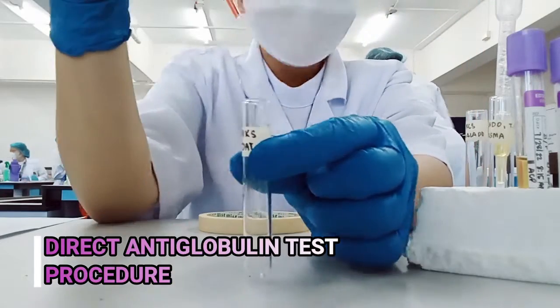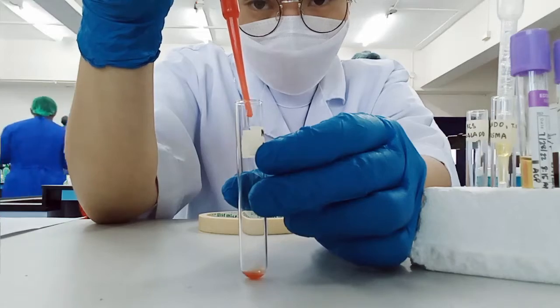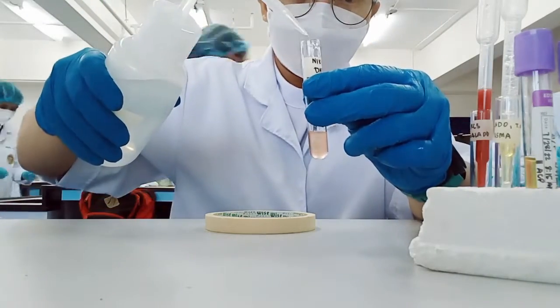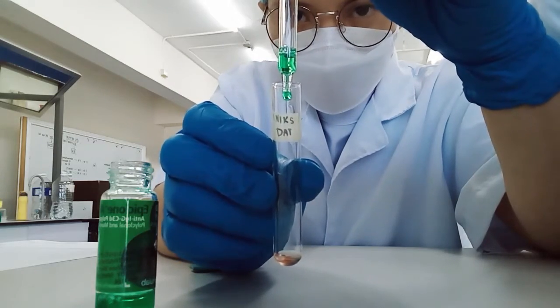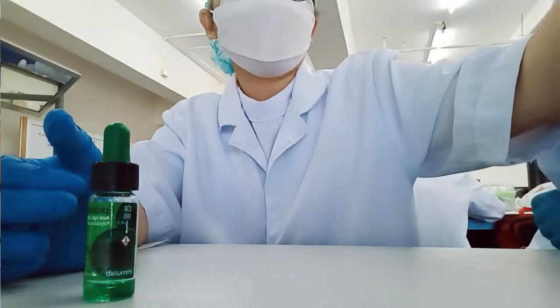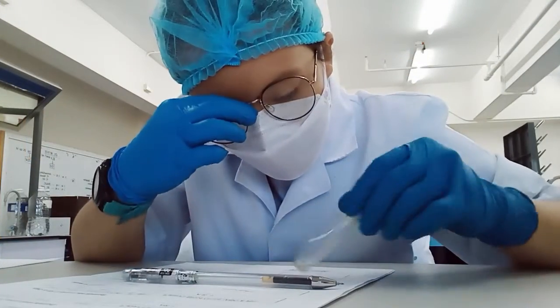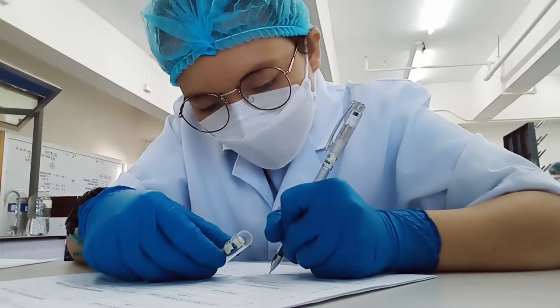Direct antiglobulin test procedure. Dispense 1 drop of red cell suspension into a clean labeled test tube. Then wash the tube with normal saline solution. Immediately add 1 drop of anti-human globulin to the cell suspension. Then mix. Centrifuge for 30 seconds at 3,400 RPM, then examine the cells for agglutination. Grade and record the reaction.